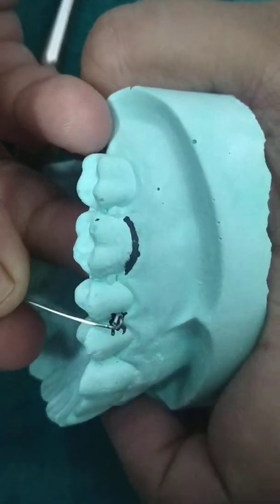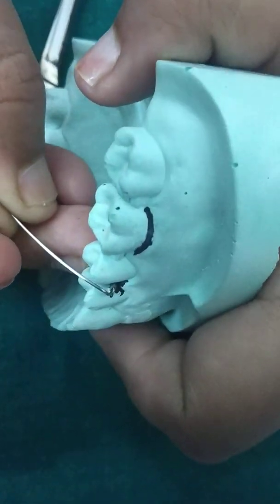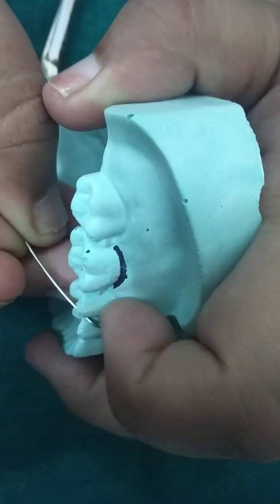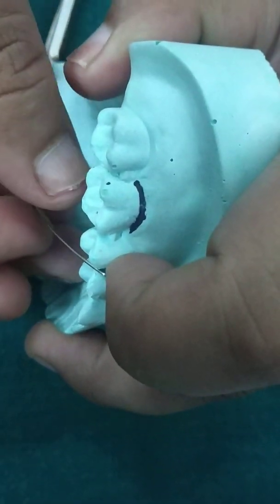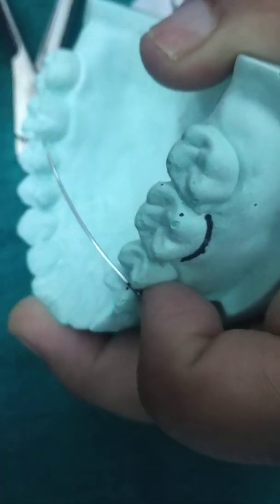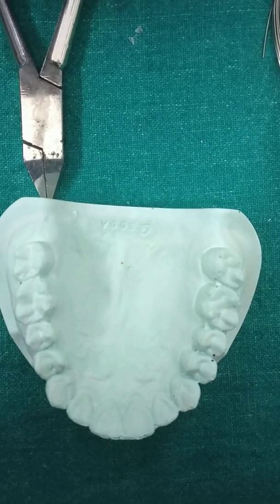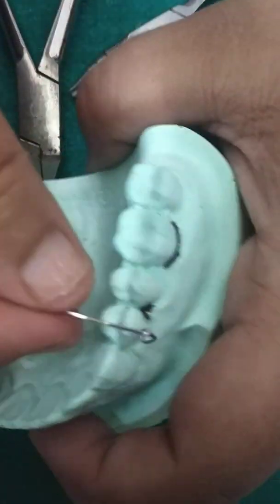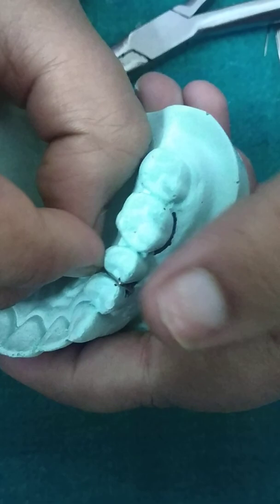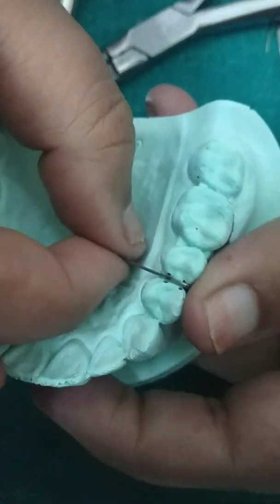Place this in the undercut region like this — you will see there is a triangular-shaped space. Then I am marking the reference points for bending it interdentally, and then we will make another mark for another moment.